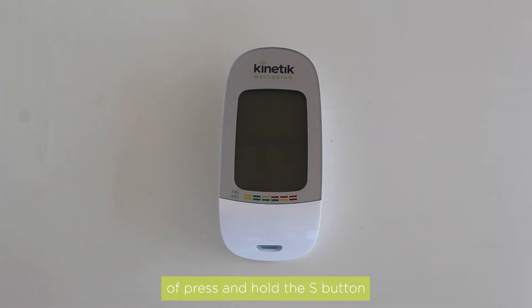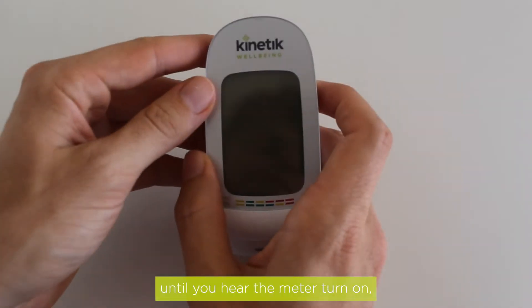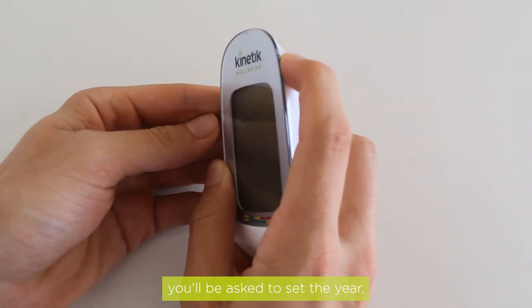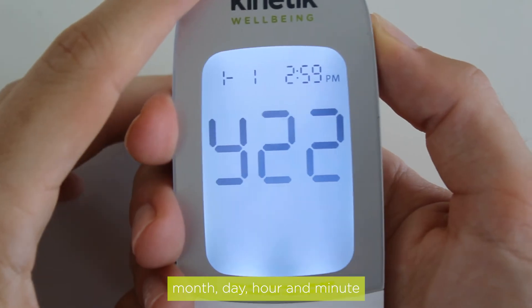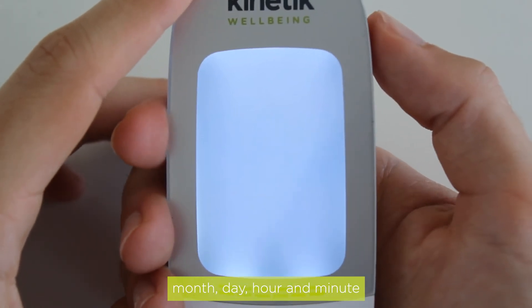With the meter off, press and hold the S button until you hear the meter turn on. You will be asked to set the year, month, day, hour and minute.